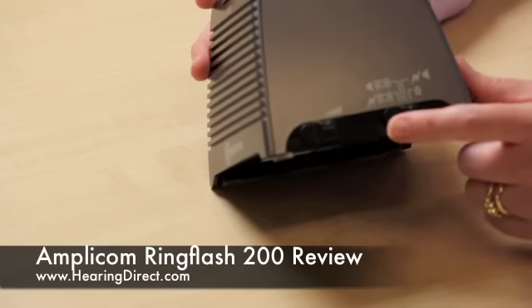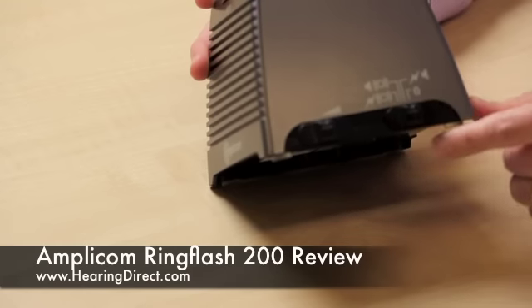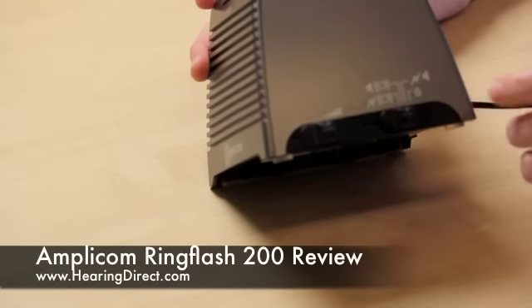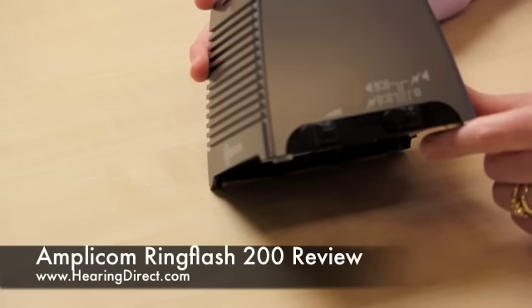If you don't want the ring of the phone to be amplified, you can switch it to the zero position, but this will still alert you to the doorbell. You can also set it so that it will just have a sound for the doorbell and not a light, or for both the light and the sound.